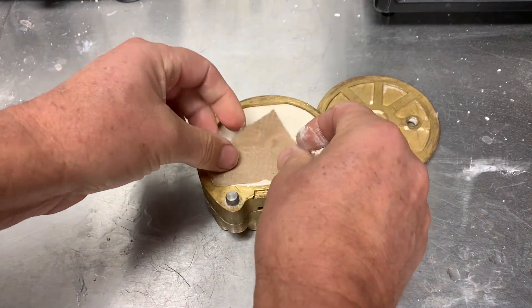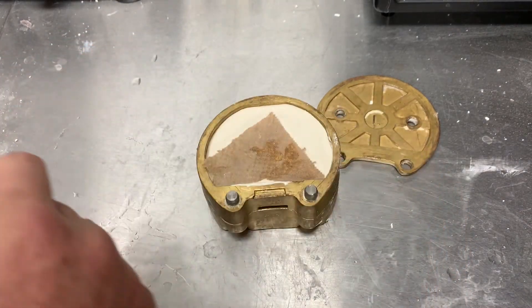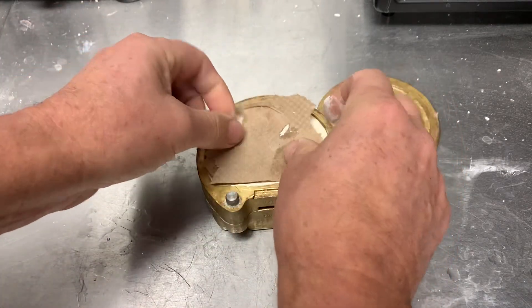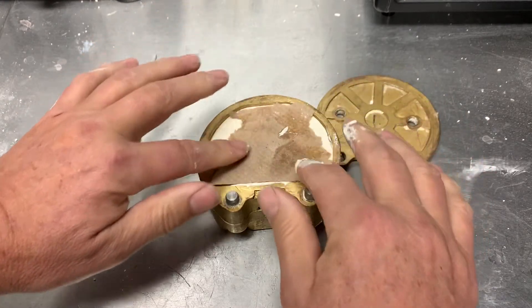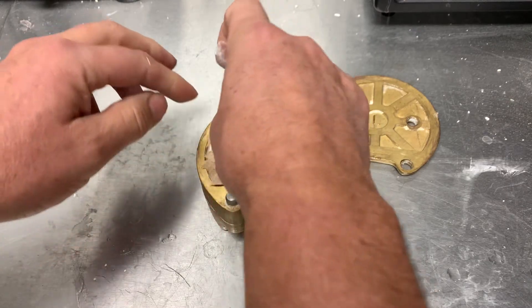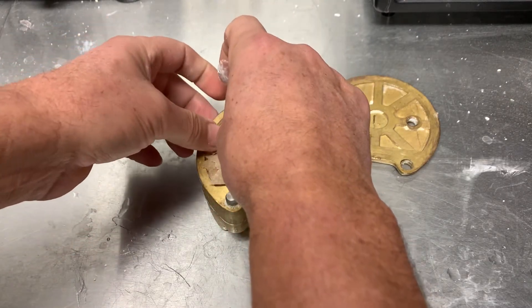I'll use some paper towel left over here — this will ease deflasking between one layer and the next. You can cut it perfectly by just ripping some pieces off.